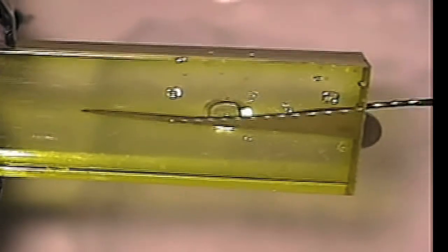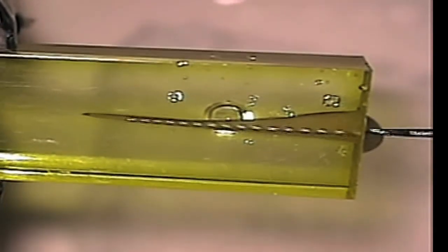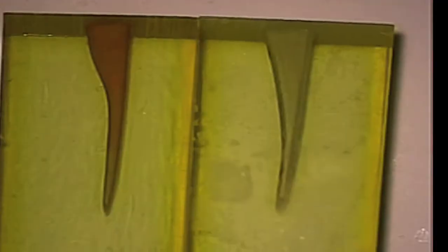The vertical flutes of the relieved reamers, oscillating at approximately 3,000 to 4,000 cycles per minute, effectively cleanse the canal walls literally within seconds.